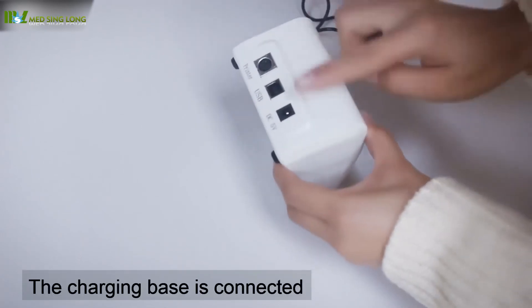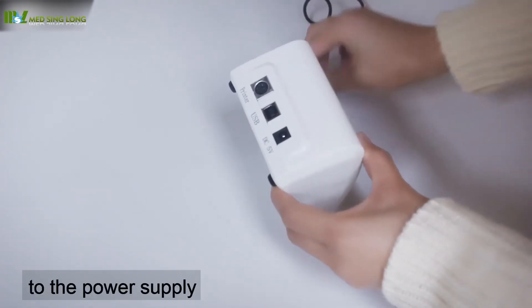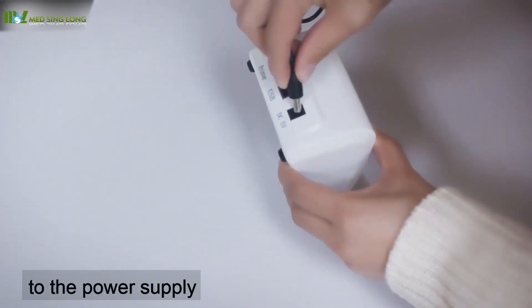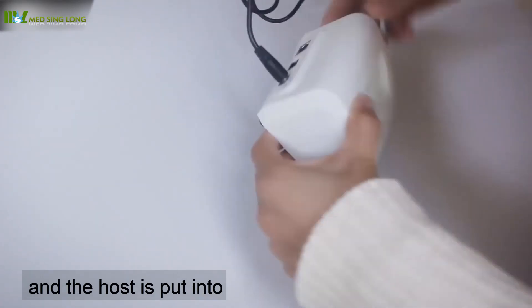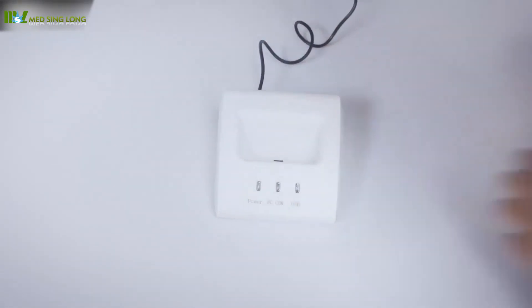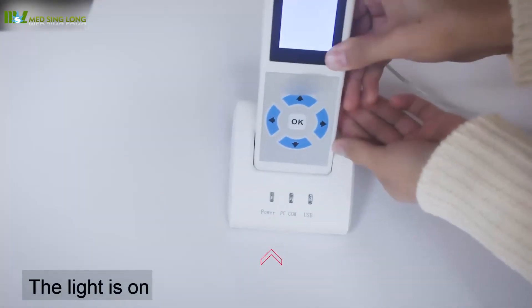To charge the host, the charging base is connected to the power supply. The host is put into the charging base. The light is on.